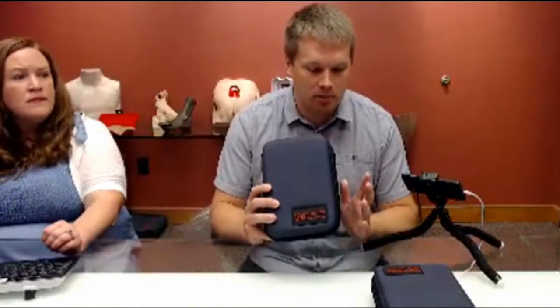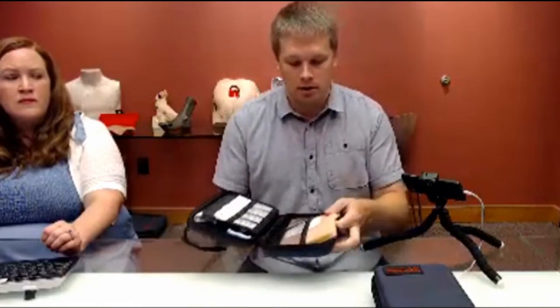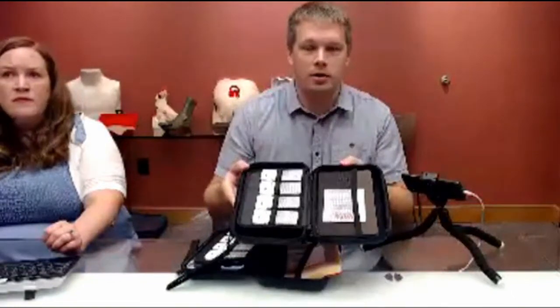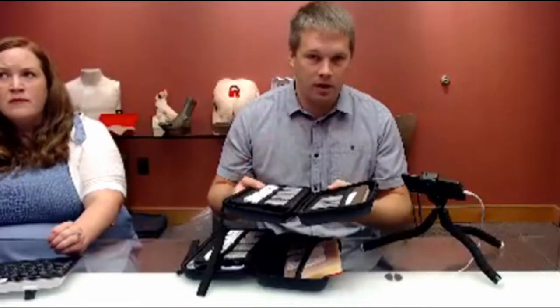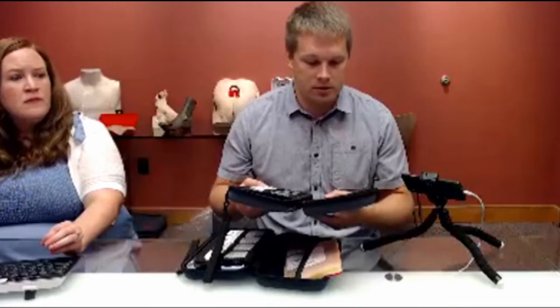So we started working on different materials, figuring out what could be an improvement on what was out there, and that's where we came out with our Suture Skills Trainer. It comes in both the 3500, which is the light skin — you can see the light skin here — as well as the darker skin, which is our 3502. Brandy's going to send out an email afterwards with all of this product info, video links, and a discount code that you can use if you're interested in purchasing.